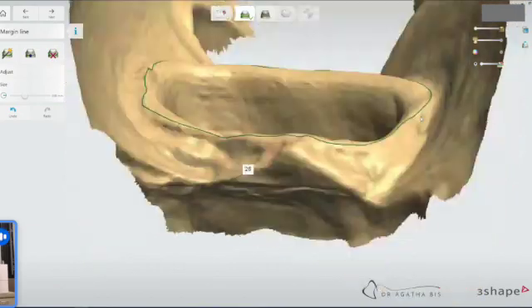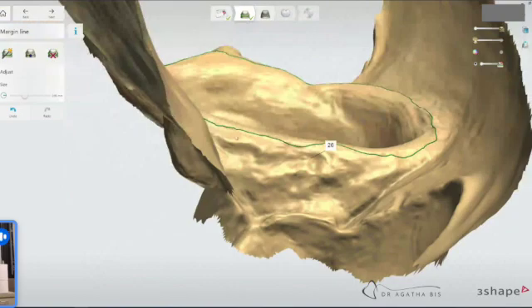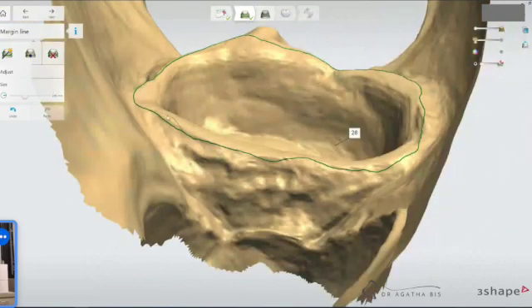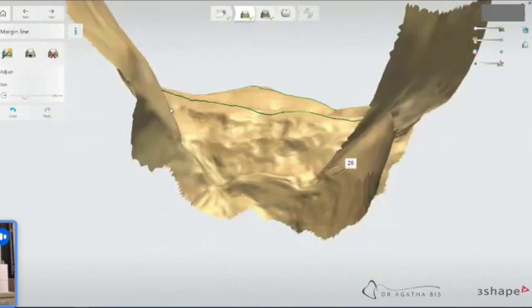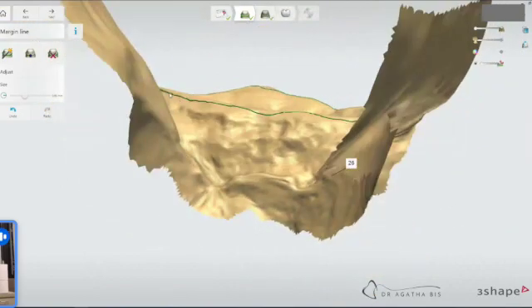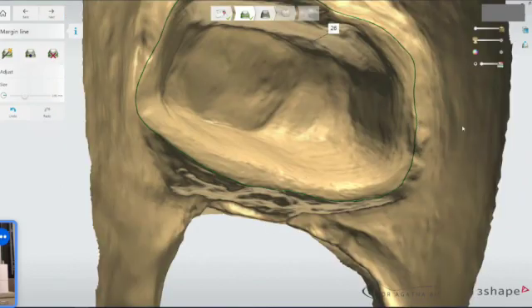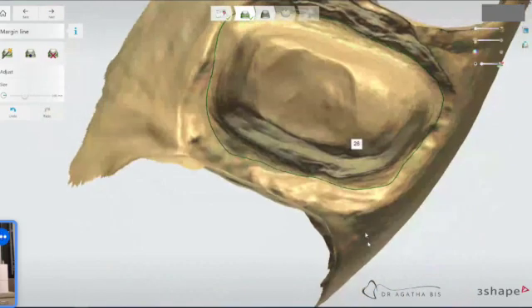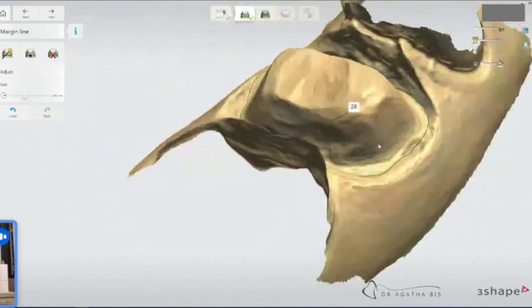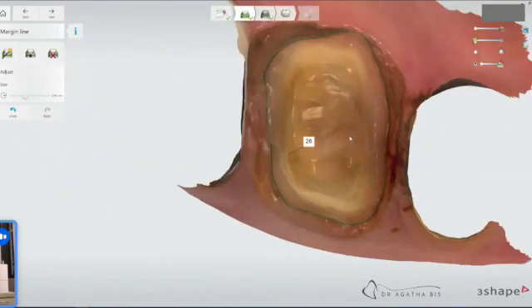And then tweak it here, flip it around, go to the other side. You can see how the software automatically shows you where we've gone too low. So I'm just going to raise it right to the top. And then just flip it back over and double check to make sure I've got all the margins.